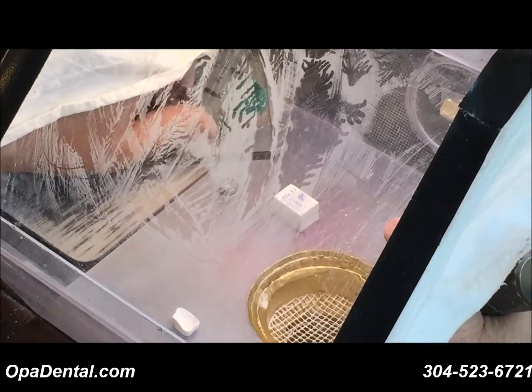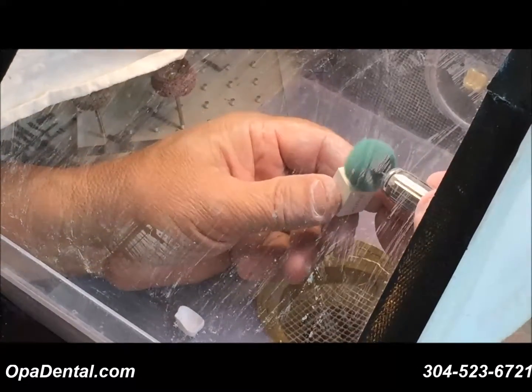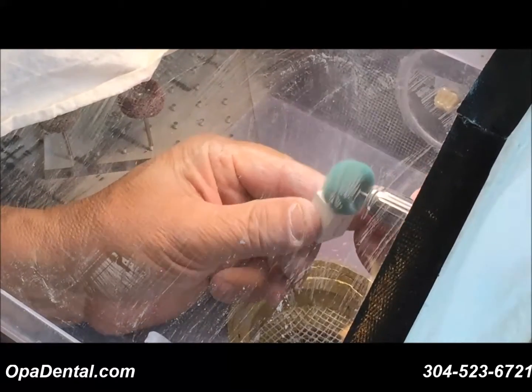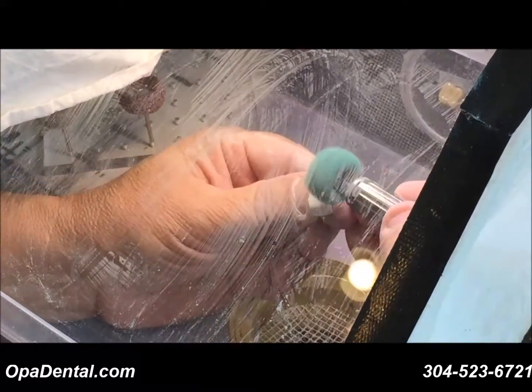Last is the fine. Same thing — it's green in color. When it's brand new, I'll remove that color off of there. And now smooth it up.